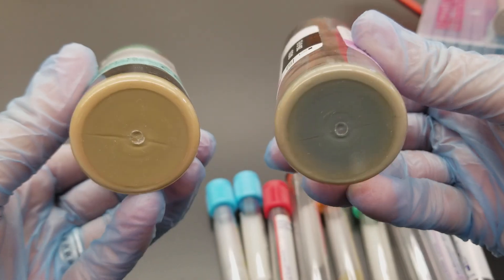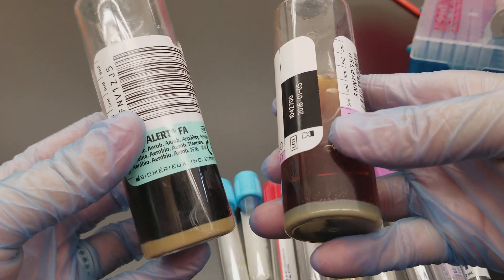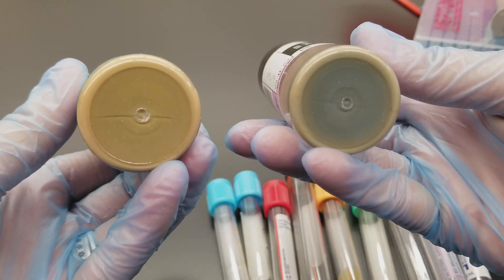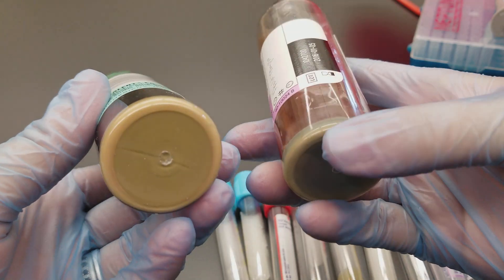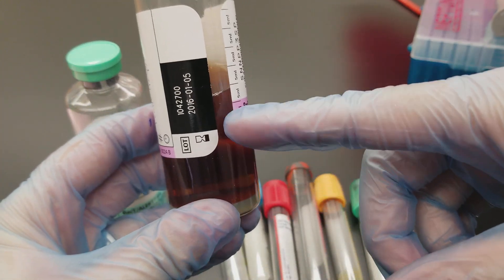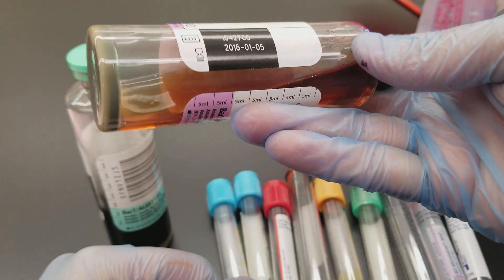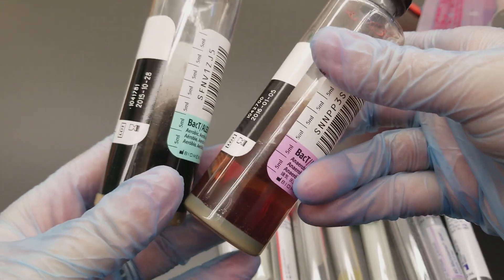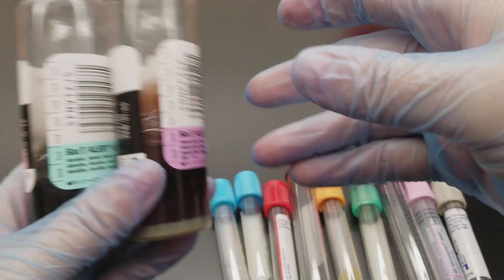At the bottom of these bottles there's a disc. When these bottles go into a special incubator, there is a light that shines through this disc every specified number of seconds or minutes, and it's going to detect any changes in color. There are also other blood culture systems that detect cloudiness in the bottle, which would indicate the possibility of bacterial growth.